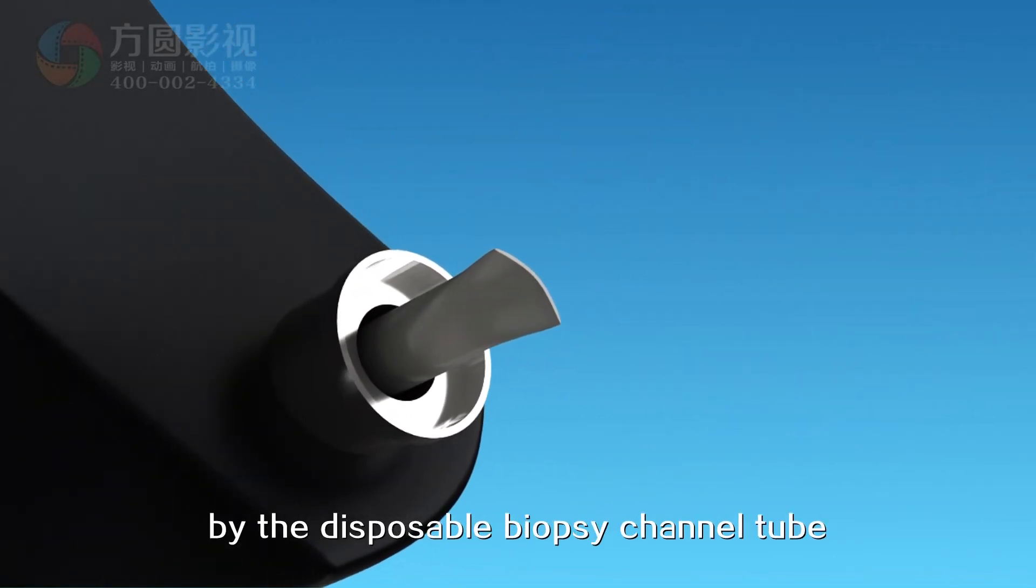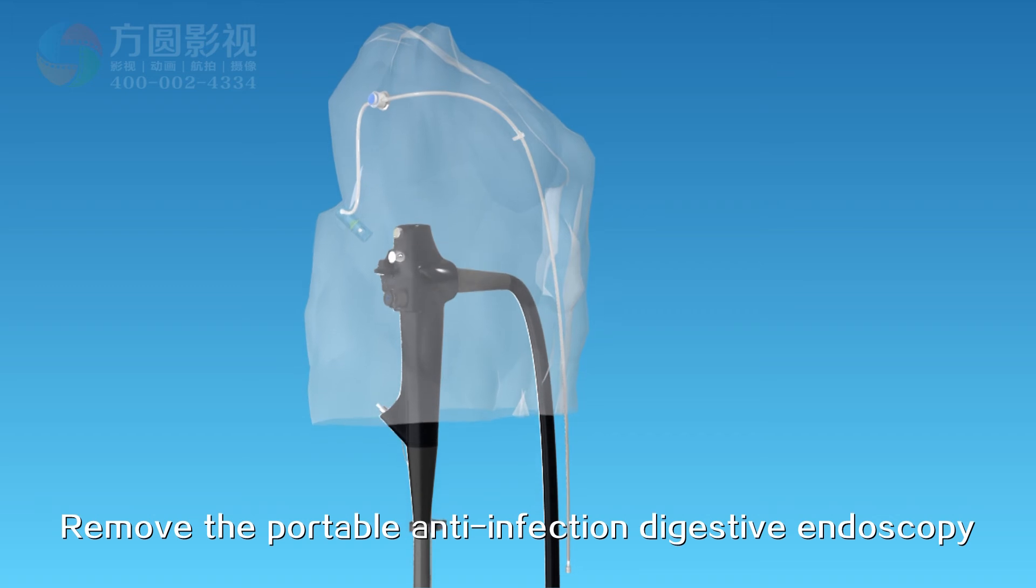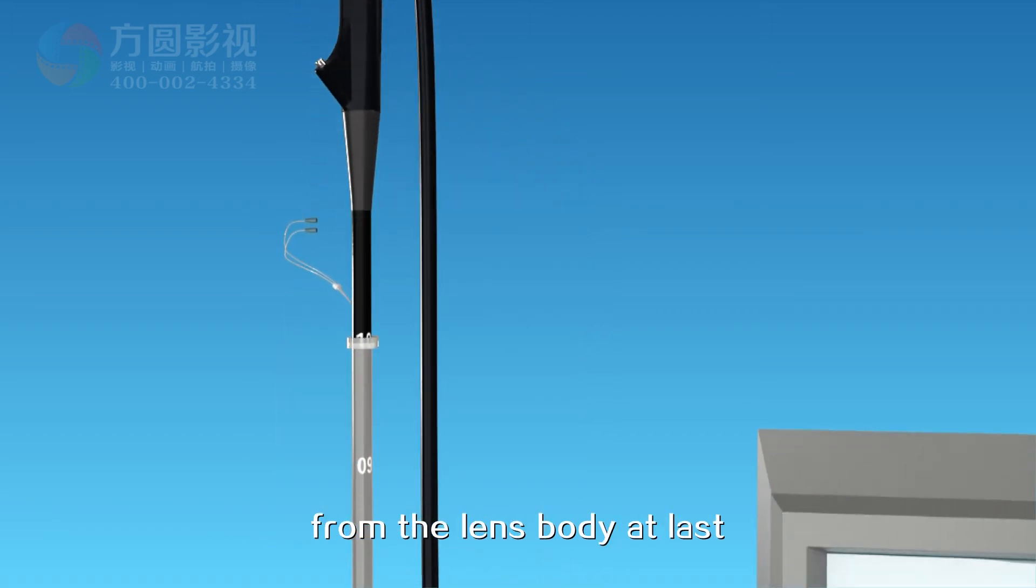When the disposable biopsy channel tube leaves the lens, remove the portable anti-infection digestive endoscopy from the lens body at last.